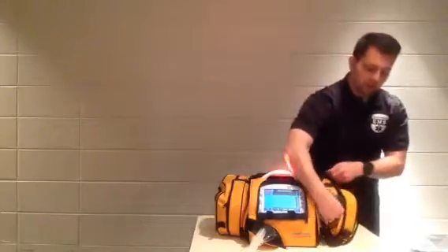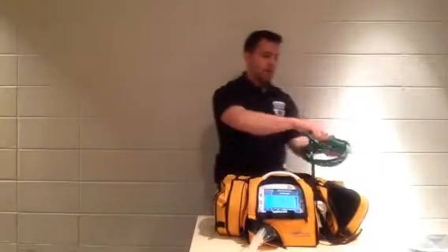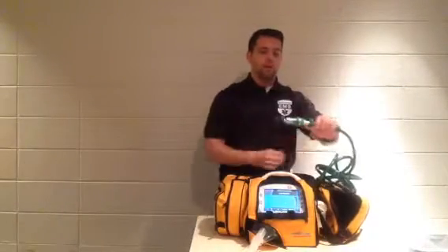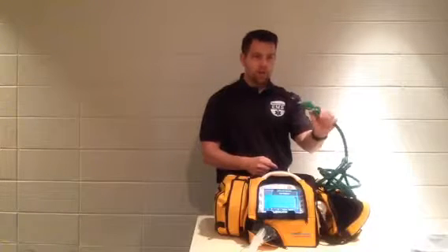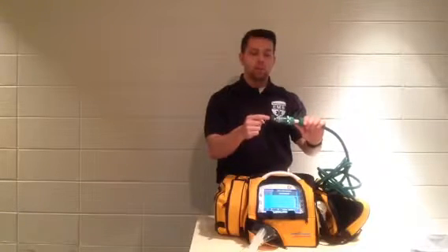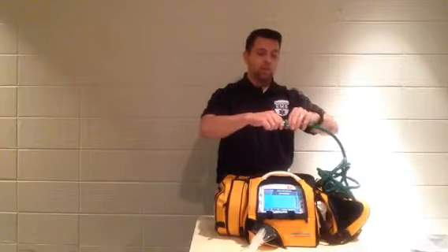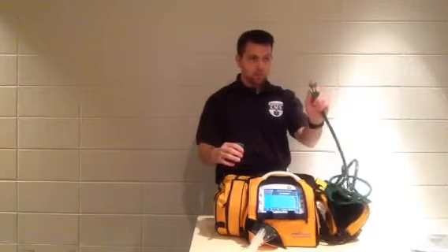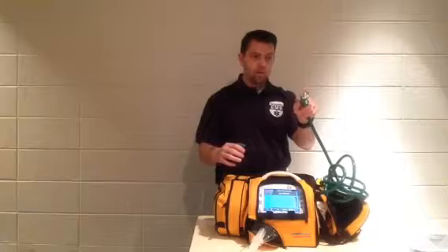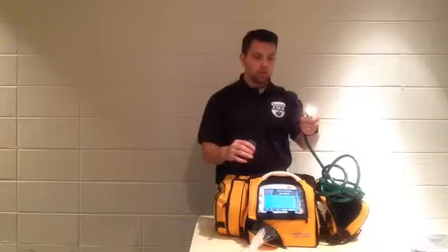This is a 50 psi line, and it has your adapter on it. So this simply screws on to either the wall at the patient's bedside or, more appropriately, the portable tank on the head of the stretcher. It has a quick disconnect feature right here, so then you can just leave that connected and then go into the sidewall of the ambulance. Sometimes this sidewall quick disconnect is also available at the bedside inside the hospital.